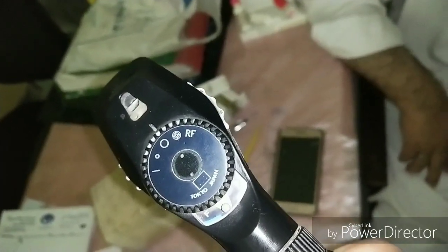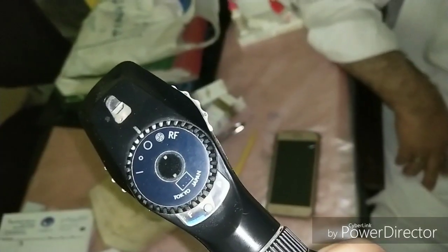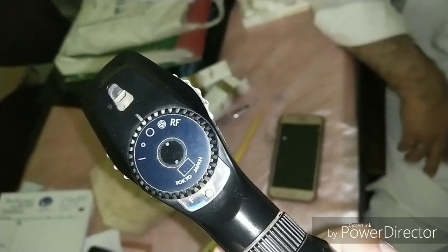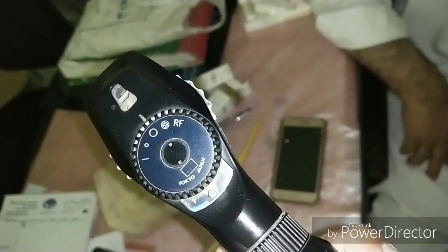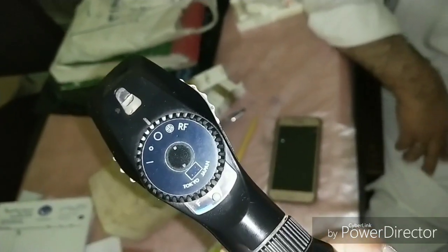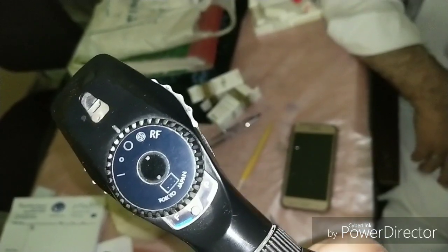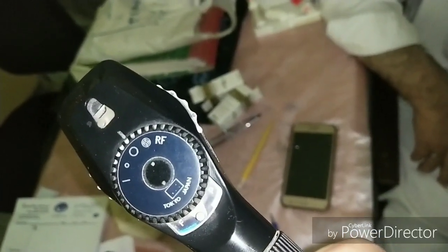Now you can see here different types of filters: the linear streak filter, the small pupil filter, the large pupil filter, the visuoscope, the red-free filter, and in some fundoscopes — not in this one — you will also find the cobalt blue filter. The linear streak is for macular pathology; in the case of a macular hole, the line will be seen broken in the center, and in macular pucker, the line will appear distorted.